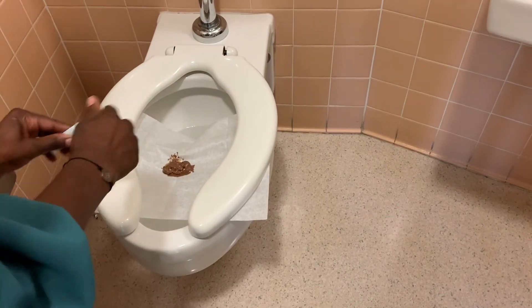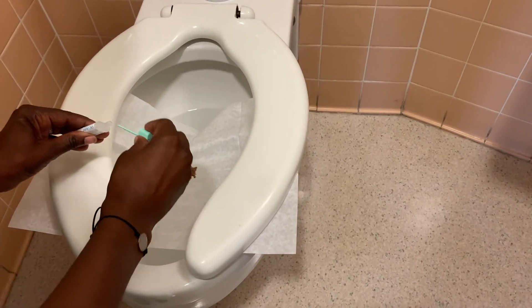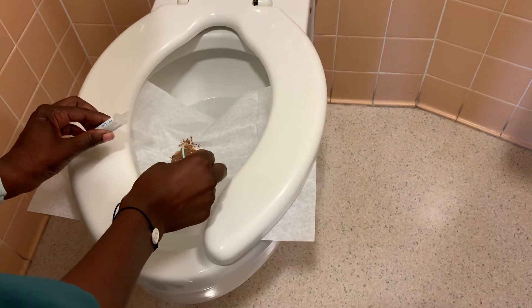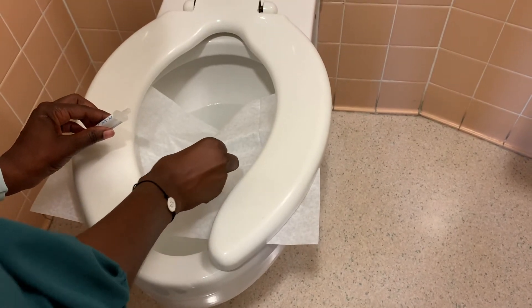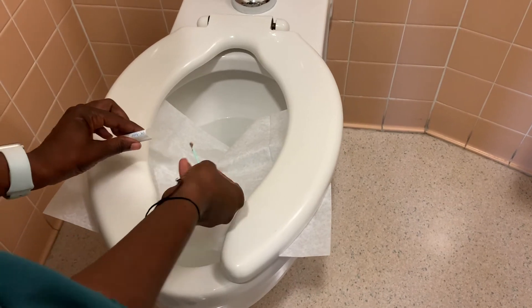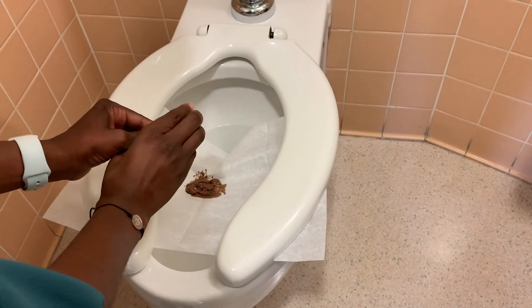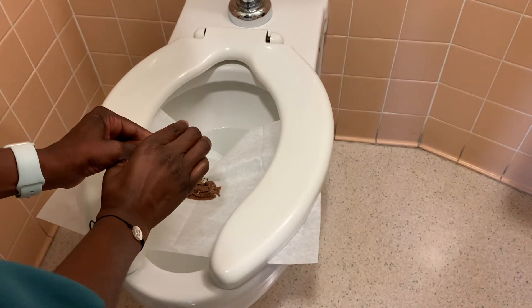Once you've had a bowel movement, you're going to take the kit and open it. Sau khi bạn đã chuẩn bị đã có mẫu thử rồi thì bạn phải mở cái bộ phận sử thử phân. Cover the tip of the stick with the stool. Bạn lấy một ít mẫu thử và bổ vào trong cái dụng cụ thử phân đó.